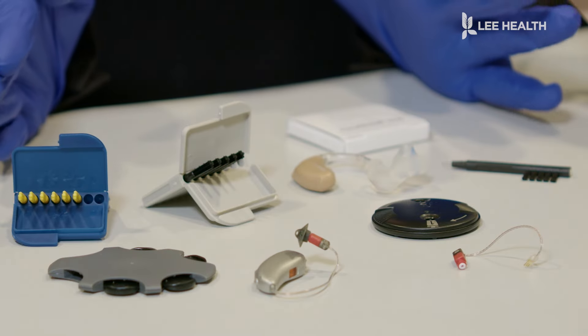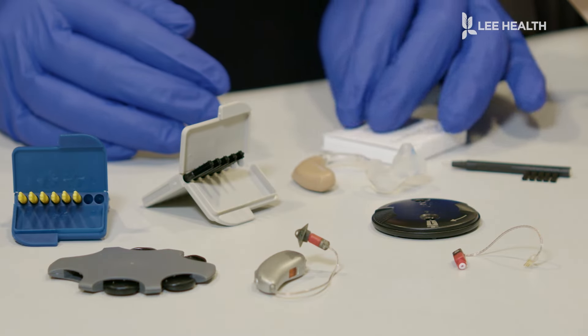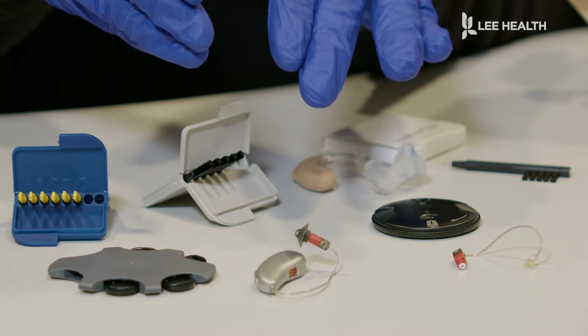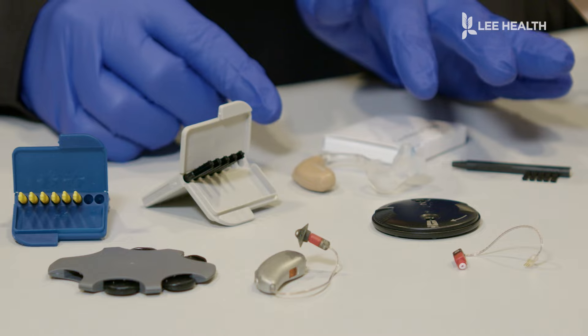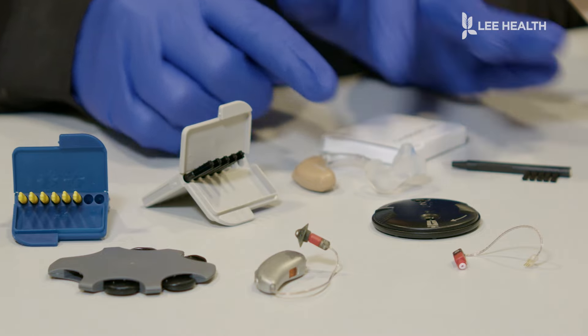So here are some of the supplies that we will be reviewing today for our standard behind-the-ear with the receiver wire hearing aid and our more custom BTE hearing aids with the custom mold piece.